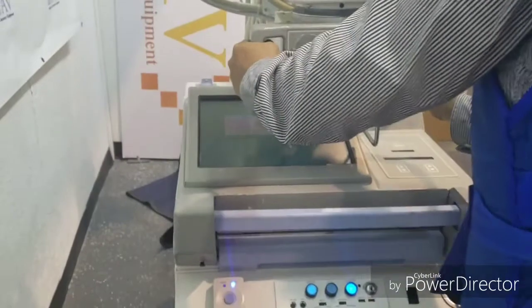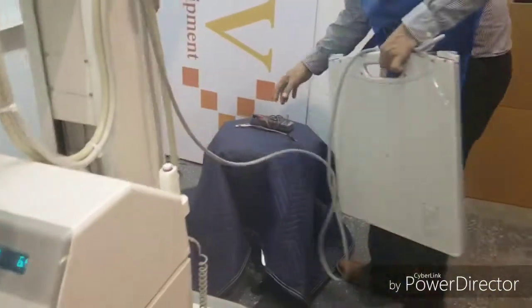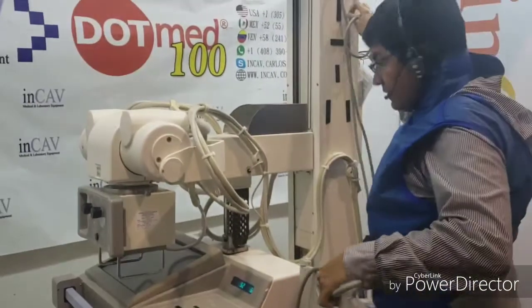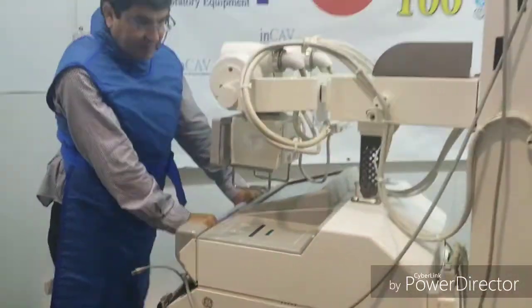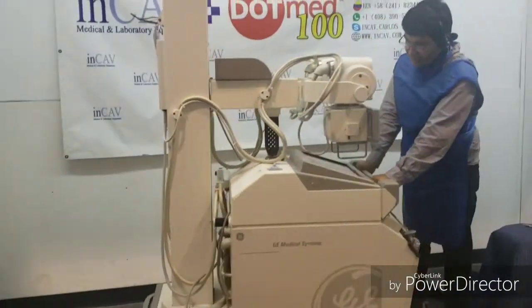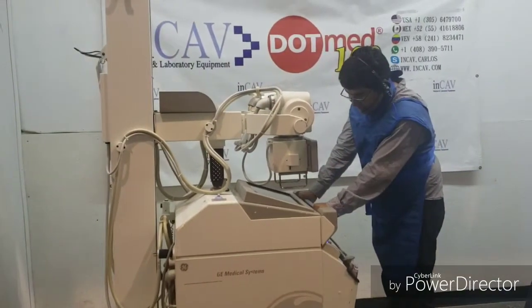It's shutting down now; we can shut down and transfer the X-rays. Take the patient out of the room. Remember to be very careful handling the detector — never pull the cable hard, don't twist the cable. That's it — be very careful using these units. This has been the AMX4 DR.